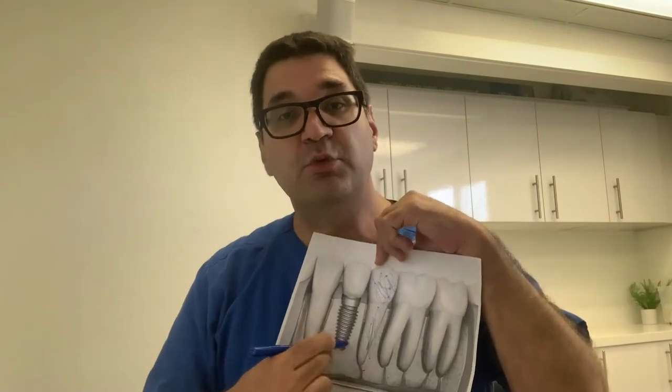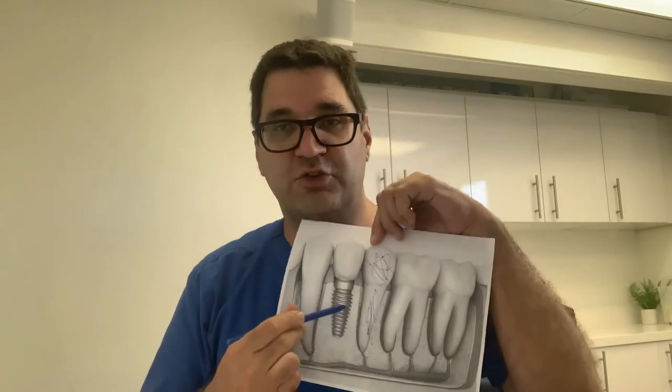When you get the implant, the tooth is removed. And for a lot of people who've been having problems with a tooth and spending good money after bad money trying to save these teeth, it's a losing battle. So for those people, getting rid of the tooth and replacing it with an implant is a blessing. An implant consists of three parts: one is the post, which is the screw that's placed in the jaw — it's literally a screw that's drilled into the jaw.